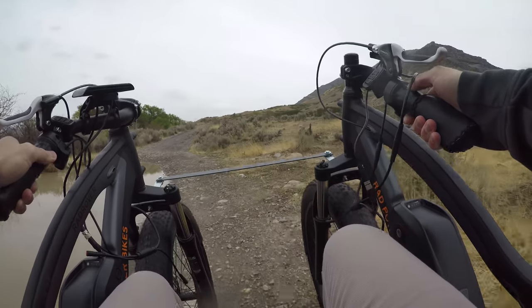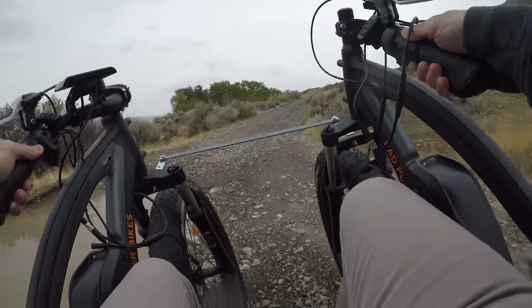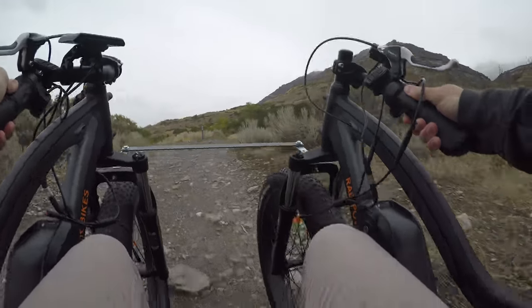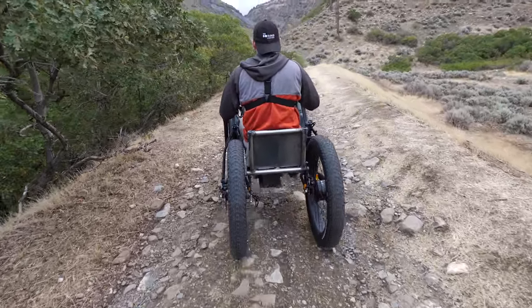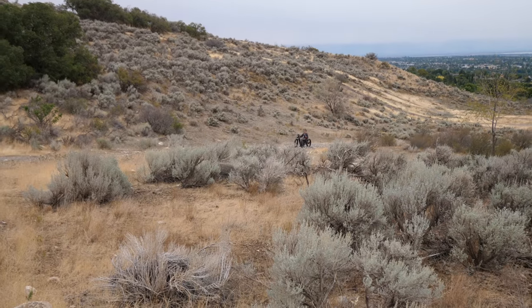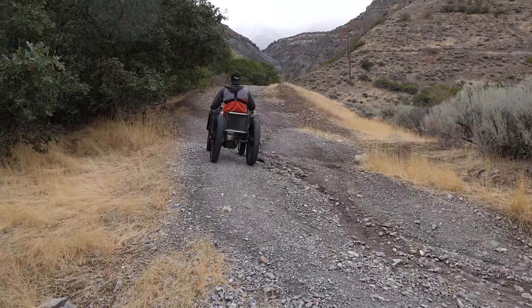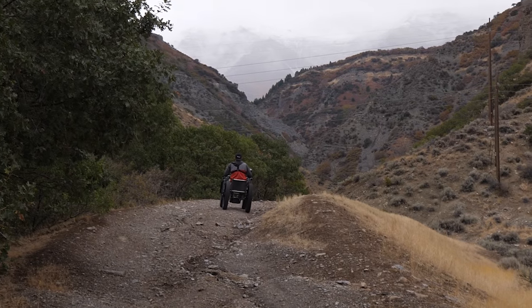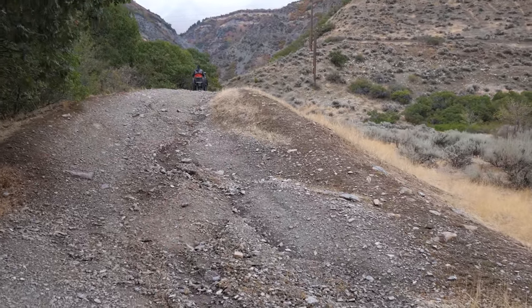We discovered the bike is built more for speed and flat ground than for torquey uphill adventures, which is fine because most of the time it's going to be on a flat surface anyway. On a gentler slope we should be okay — and easy! One of the tires lifted up in the back and he lost traction for just a second and kind of killed his momentum, but overall it's still working.